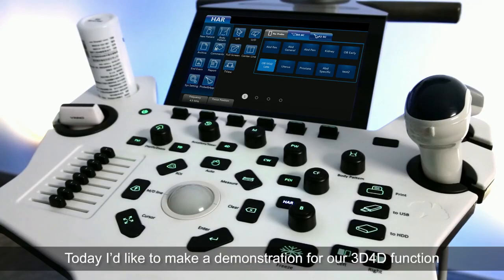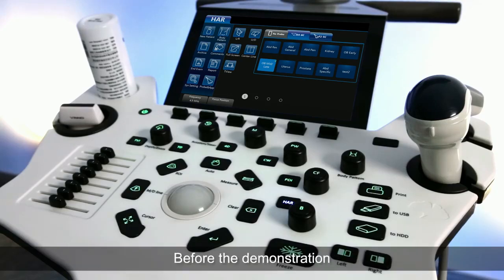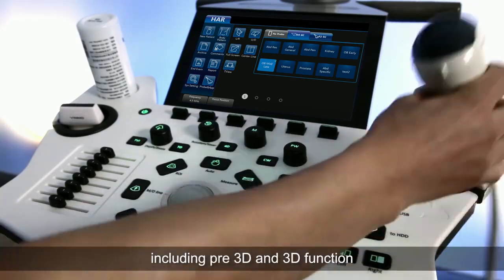Today I'd like to make a demonstration of our 3D 4D function. Before the demonstration, I will explain to you all the parameters including pre-3D and 3D function.